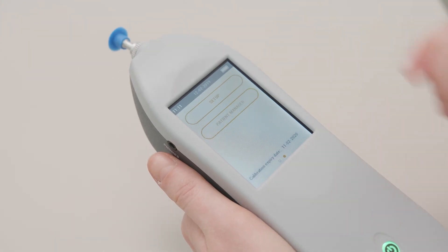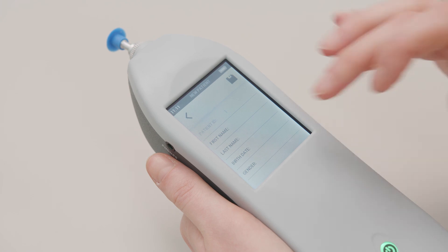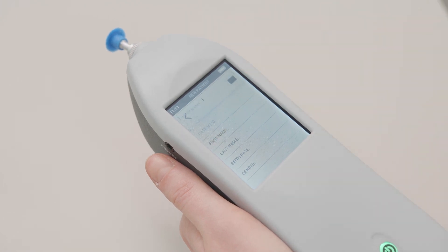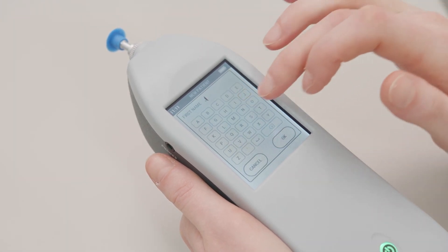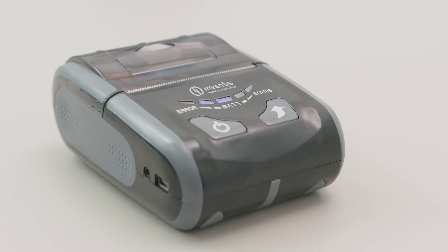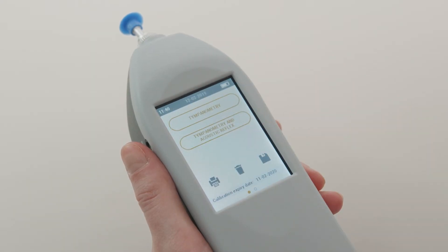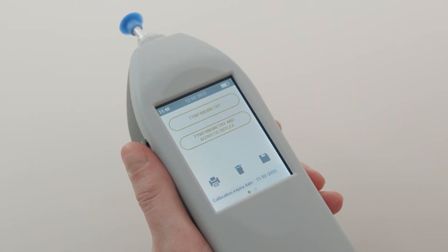In the patient manager menu you can create a new patient, edit or delete an existing one. You can store up to 50 patients. If you have the little printer, it is possible to generate a printout of the current examinations by pressing the printer icon at the bottom left of the home page screen.